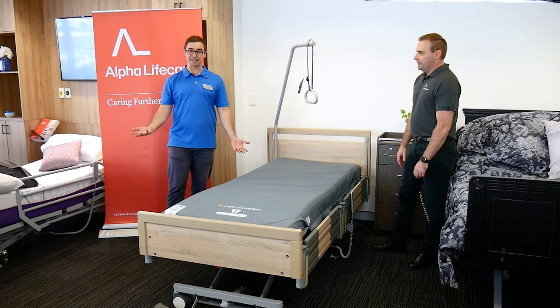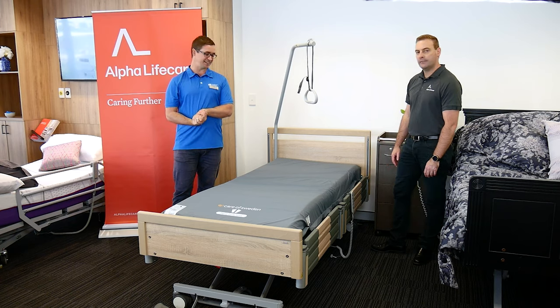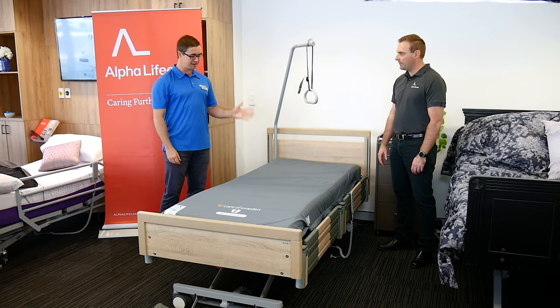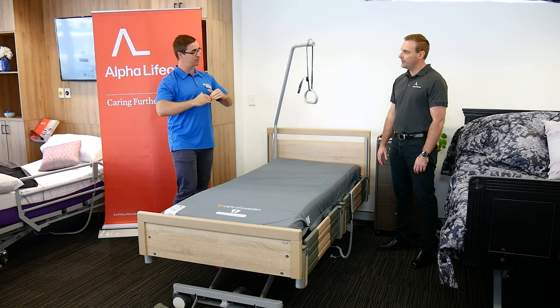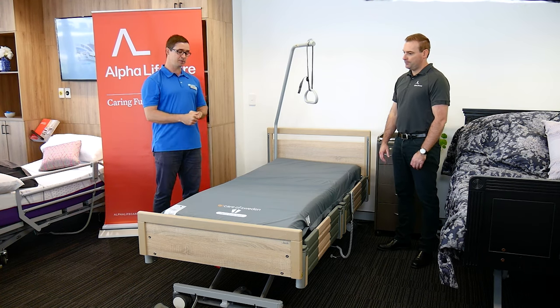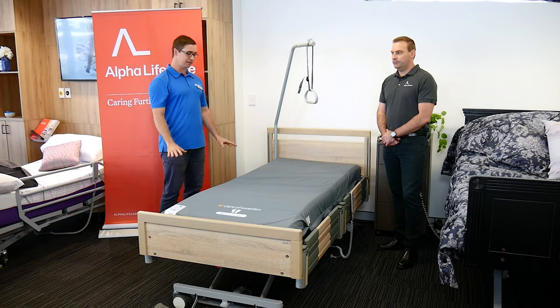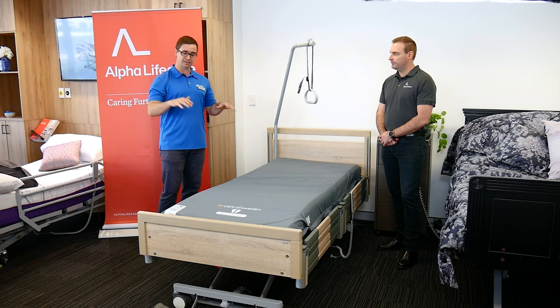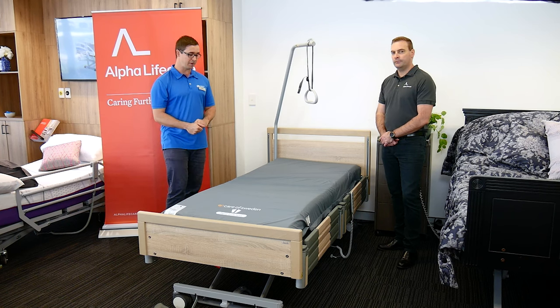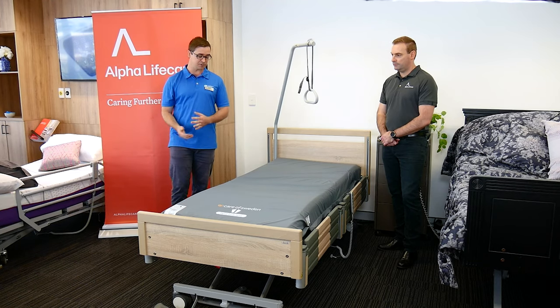We always like to explain some of these things a little bit further for people at home, not knowing if you're a health professional or just a general person without health experience. Four-section means there are different sections of the bed that can move independently. From an occupational therapy point of view, a health professional usually prescribing a bed for an older adult or a person living with a disability, we like a range of heights — in particular, that ability to go down quite low. There are lots of different reasons why we might prescribe something that low, one of those being a falls injury minimisation strategy.